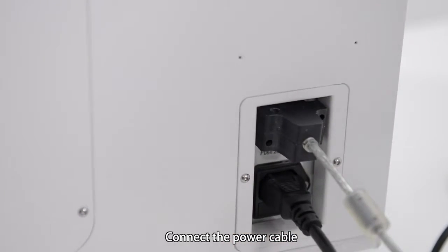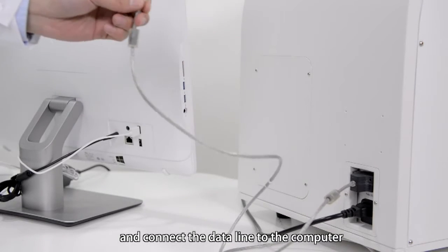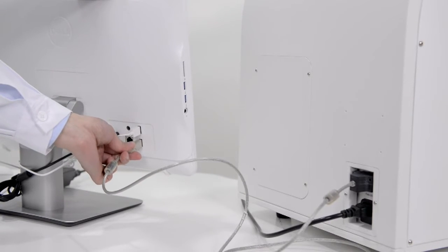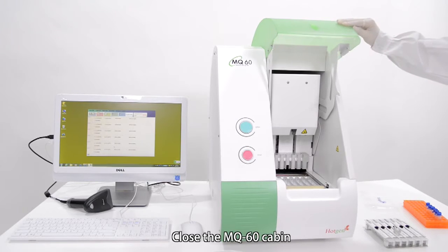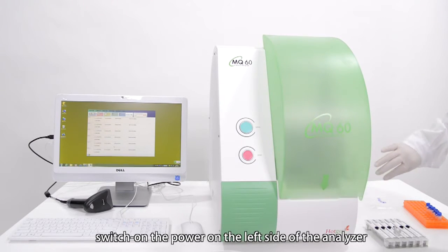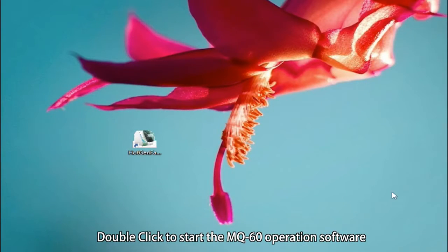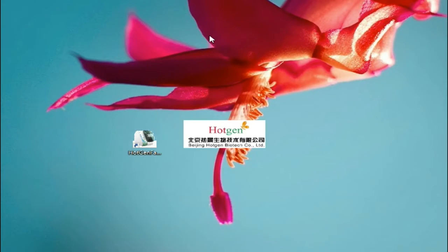Connect the power cable and connect the data line to the computer. Close the MQ60 cabin. Switch on the power on the left side of the analyzer.